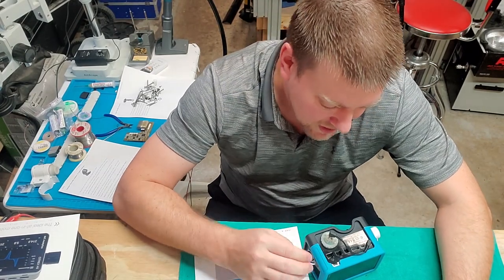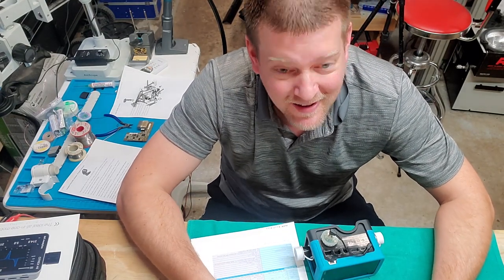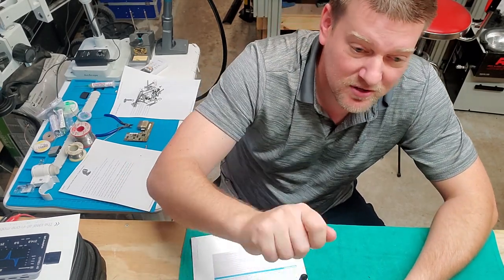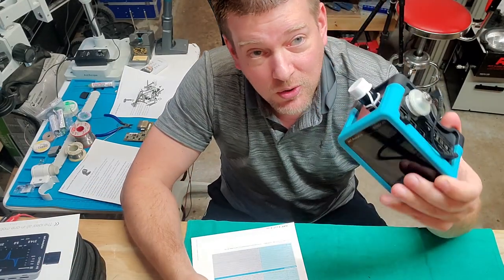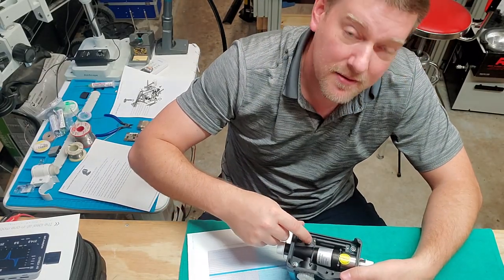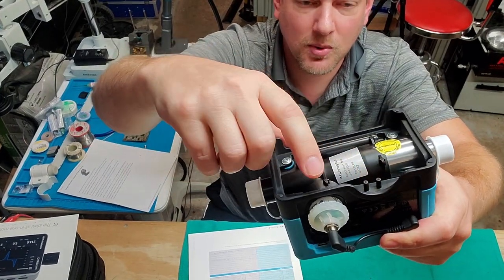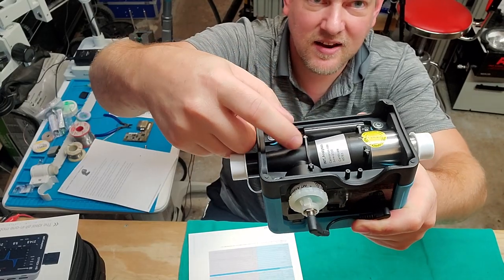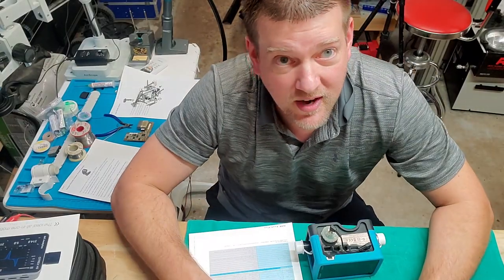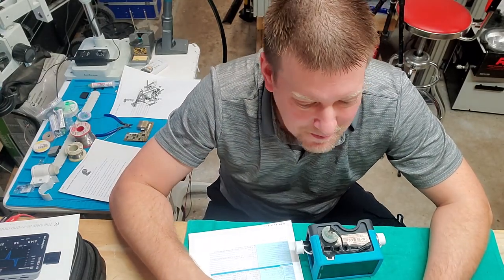With adapters you can check pressures to certify rooms. All you have to do is come up with a quick connect adapter that plugs onto the screw-down port. The lower pressure ports are here, the high pressure port uses a collet style nut that squeezes down on the tubing so it doesn't pop off and injure you. That's for pressure — negative 1 to 10 bars.